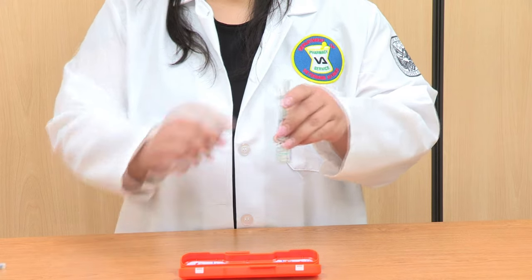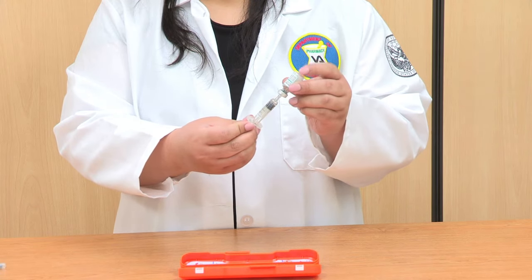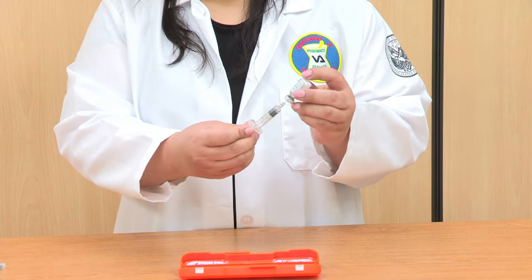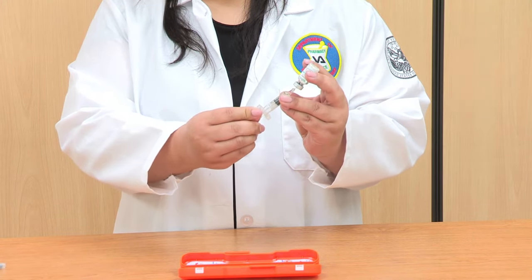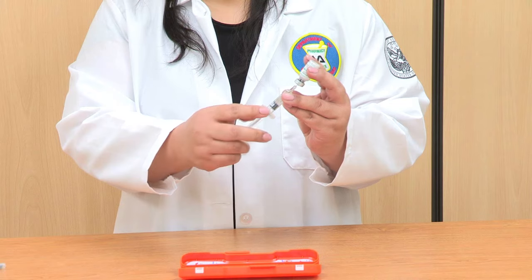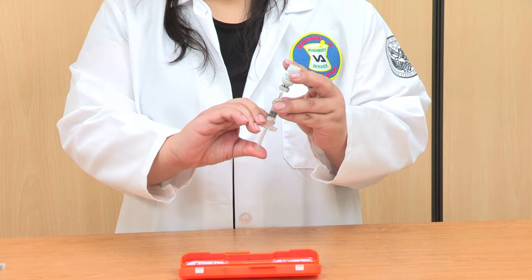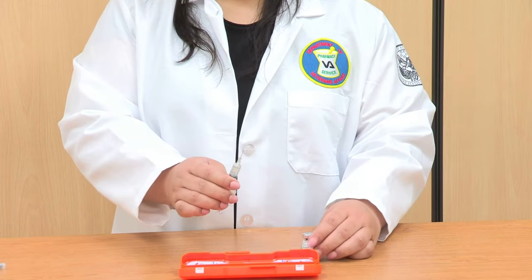Using both hands — one on the vial and the other on the syringe — turn over the vial and syringe so that the vial is on top and the syringe is below. Holding the syringe, pull the syringe needle down until the needle just shows above the top of the inside of the rubber stopper. Pull back on the syringe plunger handle until all the liquid is drawn into the syringe; the vial should be empty. The syringe should not contain air. If there is air, using your thumb, push the syringe plunger handle so the air goes back into the vial but not the liquid. Now pull the syringe needle completely out of the rubber stopper.